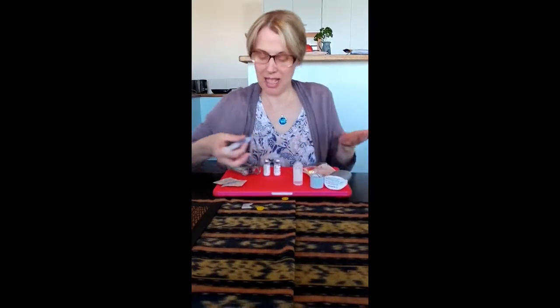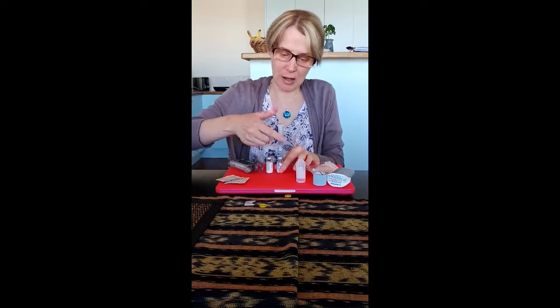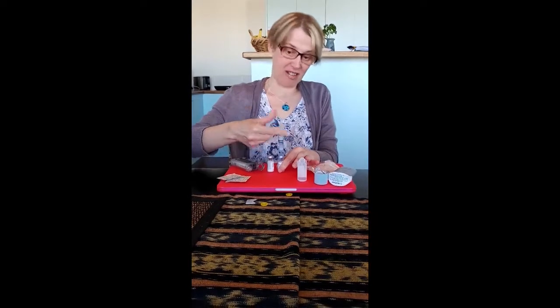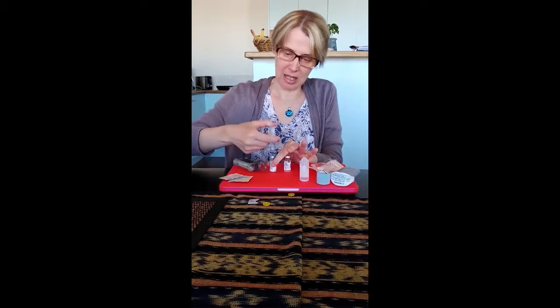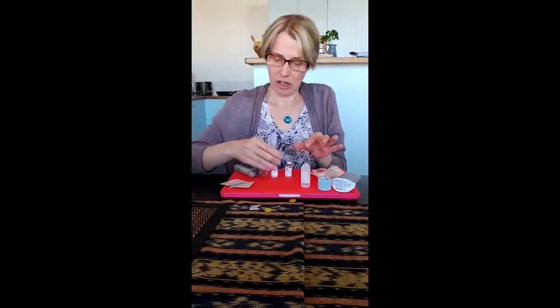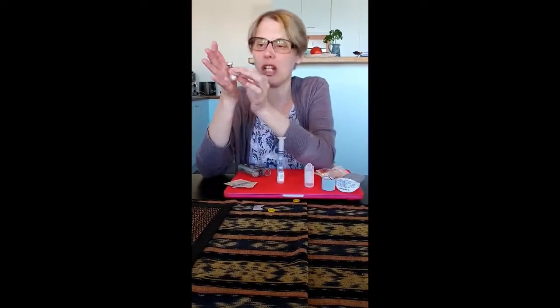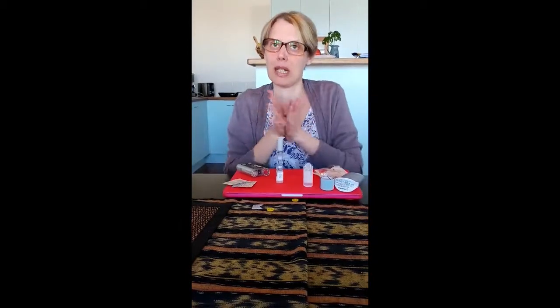It comes off very easily and it's ready. It doesn't matter if you put more into one vial or the other because I'm going to be drawing up the whole lot. I push in approximately half — or if you want to be perfectly accurate, push one ml into one and then one ml into the next. A trick the nurses taught me is to roll the Solu-Cortef vial in your hands to mix it quickly — this is what the nurses do in the hospital.